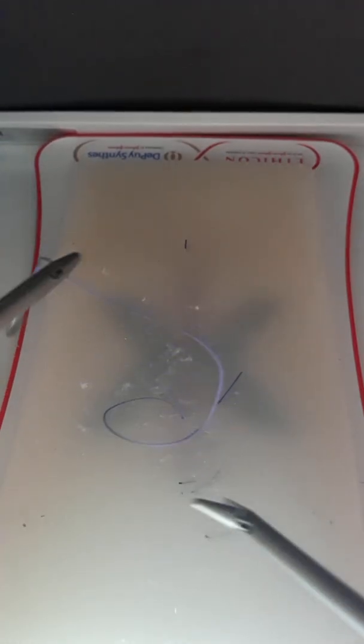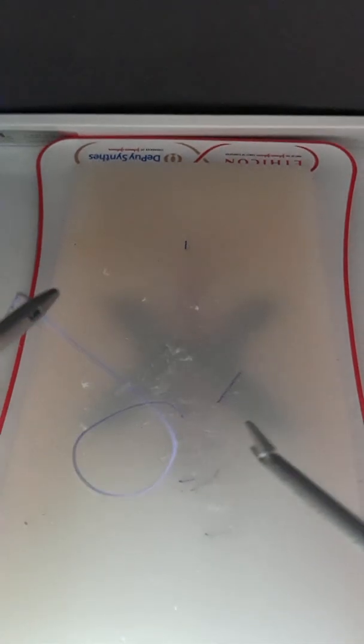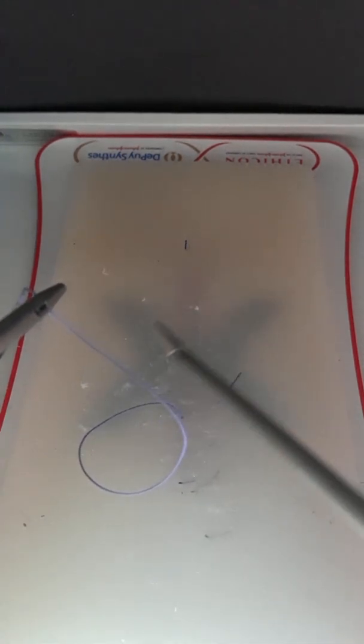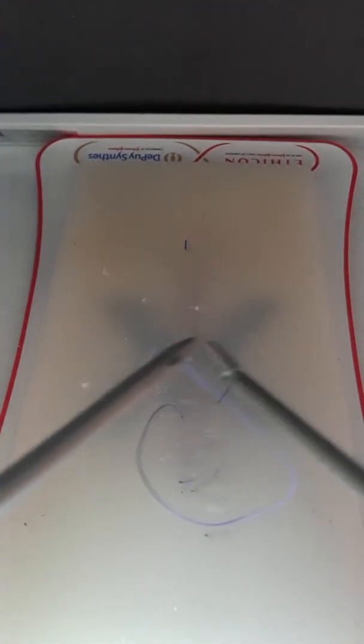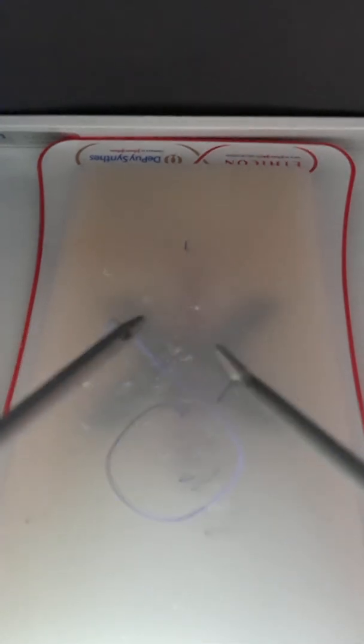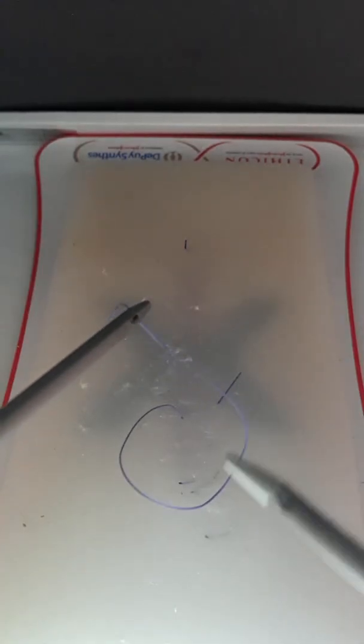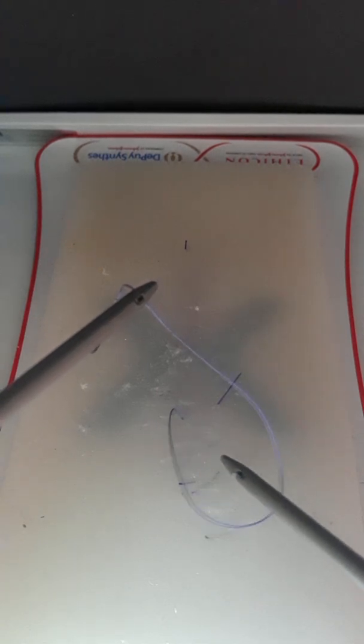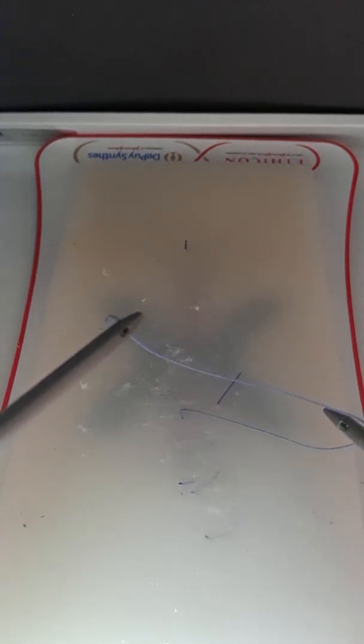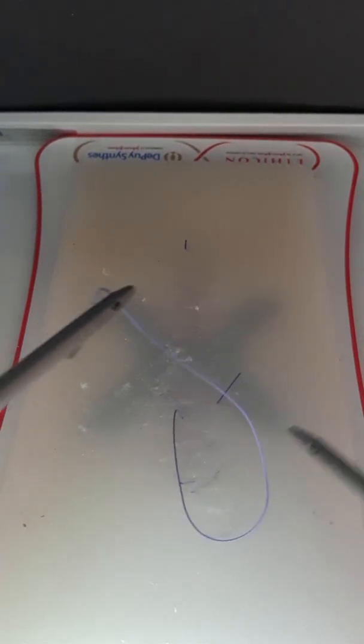One more thing: you have what's called the home box, and while you do your knots you have to travel. Right now, two different ways to see it—actually three: a C or a V. There's a V, and you can also see it as a kind of dyslexic D.